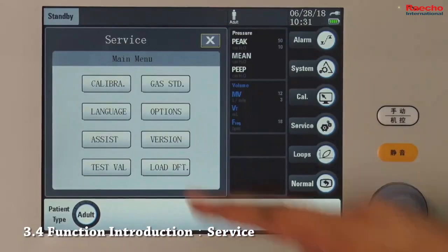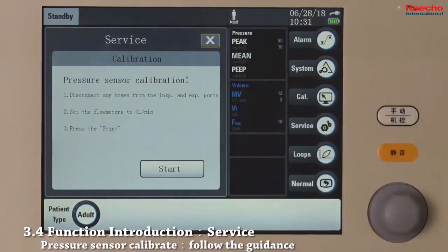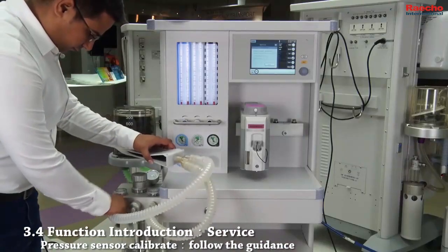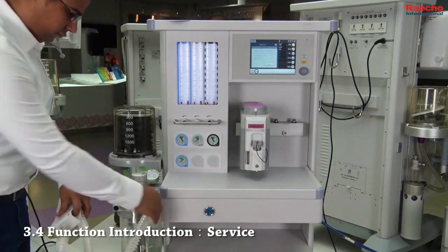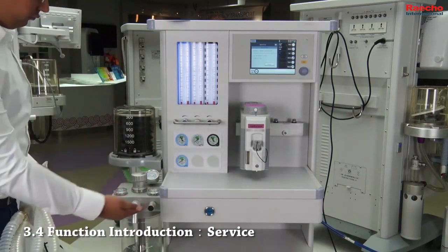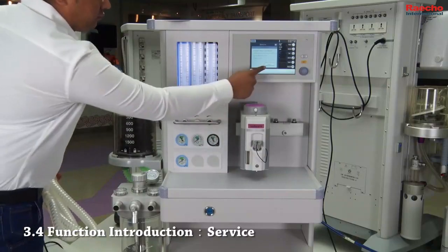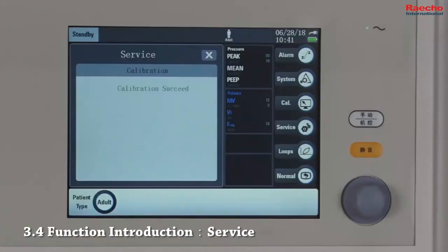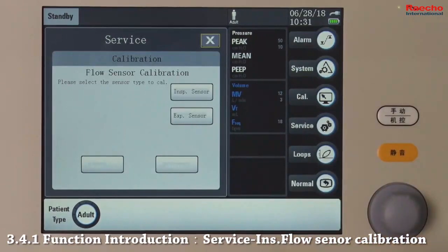Enter the service calibration and between pressure sensor, flow sensor or inspiratory valve, choose pressure sensor. For pressure sensor calibration, follow the instructions displayed on the screen. First, disconnect any hoses from the inspiratory and expiratory ports. Set all flow meters to 0 liters per minute. Press start. Succeed. In flow sensor calibration, we can choose to calibrate inspiratory flow sensor and expiratory flow sensor.